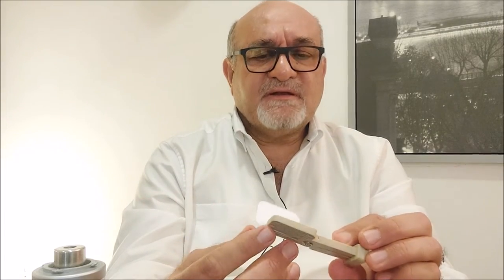To continue with the SNAP array sensor holders after finishing the upper posterior teeth — upper premolars and molars — we will shift now to the lower posterior teeth. Basically the whole procedure is repeated.